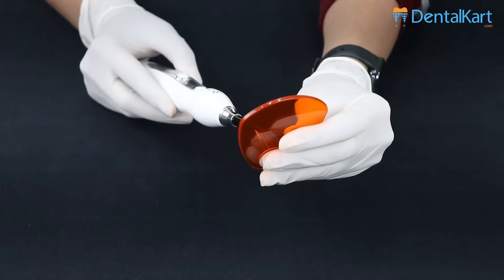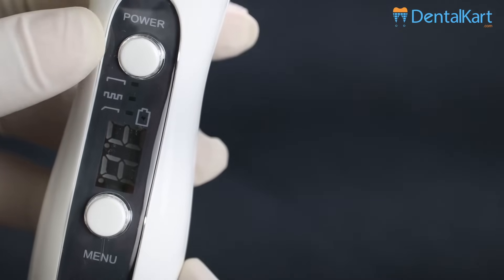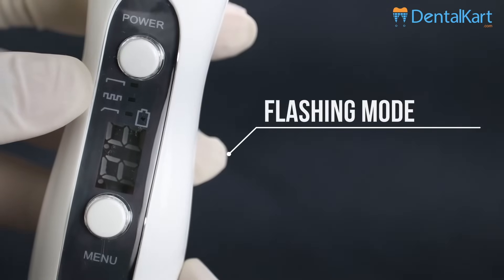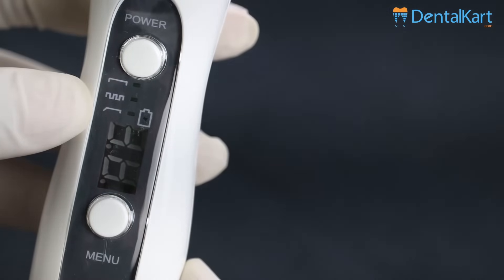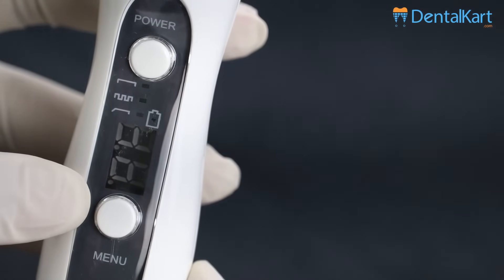Push the light protector from the front of the light guide stick. This is the power button. These are the three working modes: strong mode, flashing mode, and gradually strong mode. There is also a low battery alert, display screen, and the menu button.